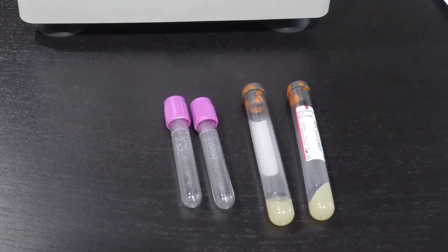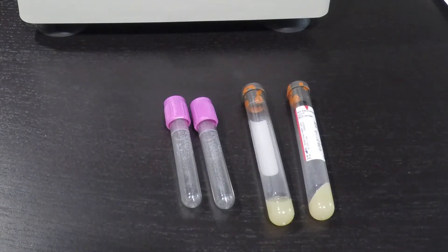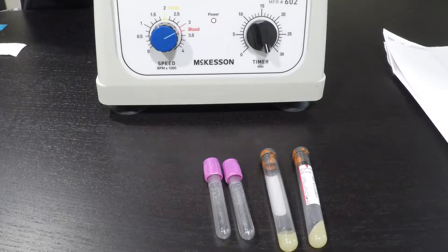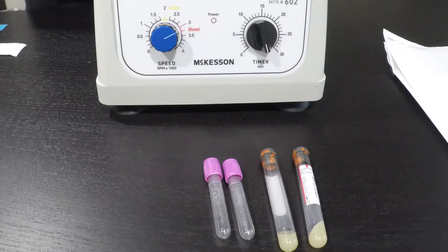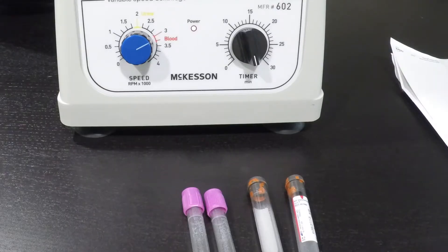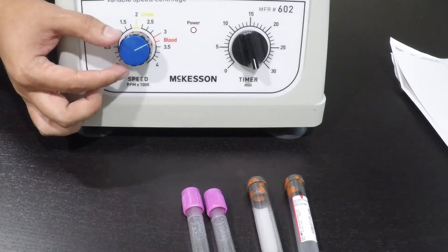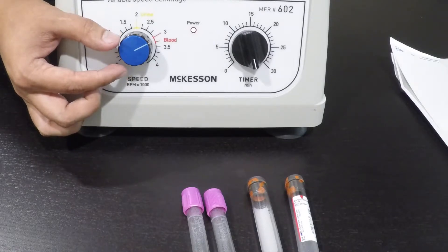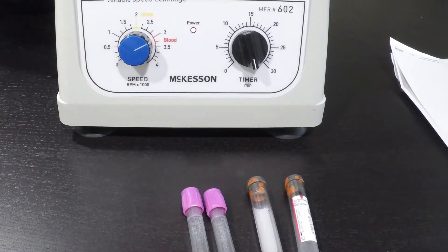The reason you draw the 2 tiger tops first is to avoid cross-contamination. Once the blood has been provided, you must wait for the tiger tops to clot for 10 to 15 minutes. Once clotted, set the centrifuge at 3,300 to 3,500 RPMs for 15 to 20 minutes.